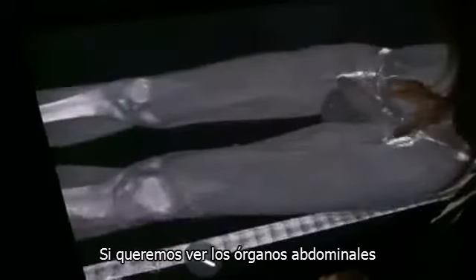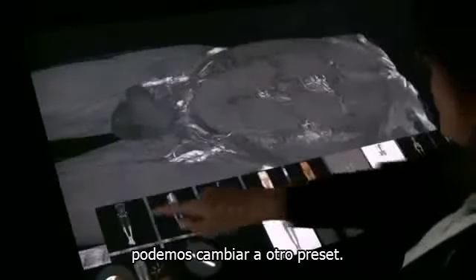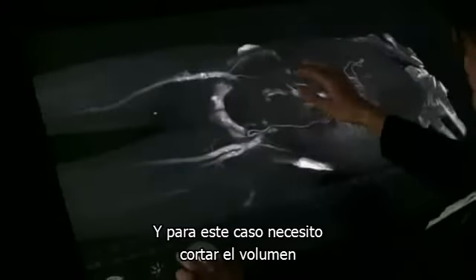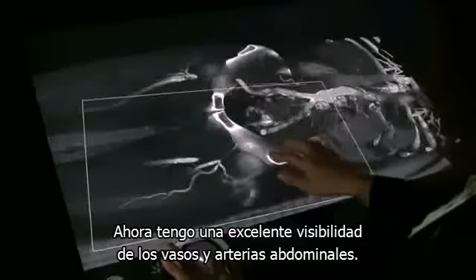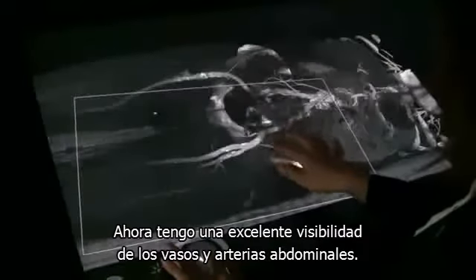So, in order to see the abdominal organs, I can change to another preset. And for this case, I need to cut into the volume with the clip plane again. And now I have a really good overview over the small vessels that are in the abdominal.